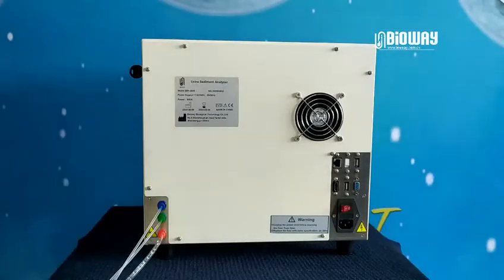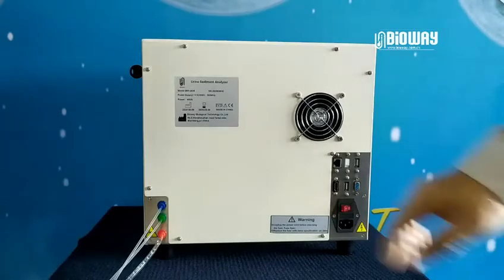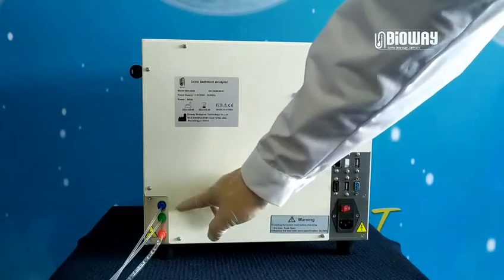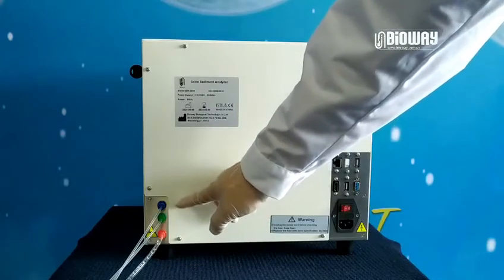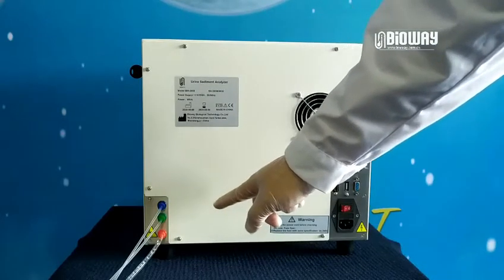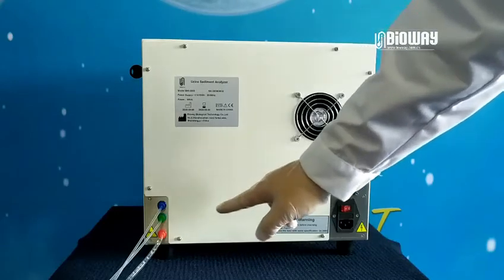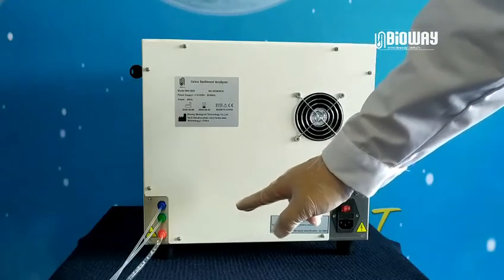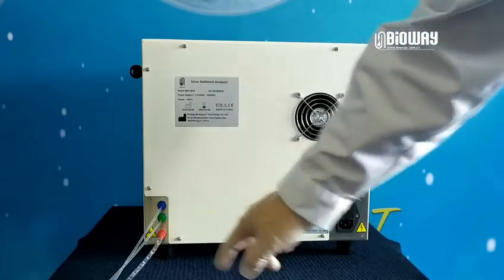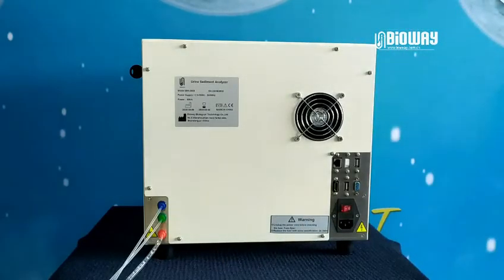Let's move to the back side. There are three pipeline joints at the left bottom. As you can see, the top blue joint links to URS200 cleaning liquid, the middle green joint links to URS100 washing liquid, and the bottom red one links with a waste liquid bucket.